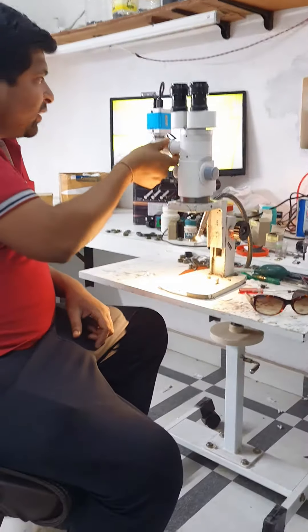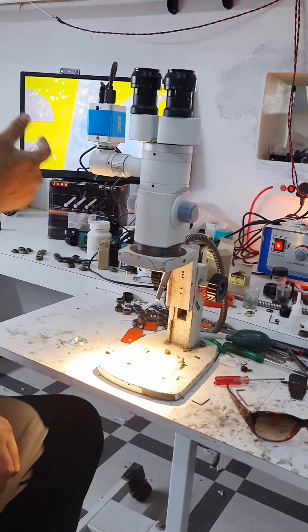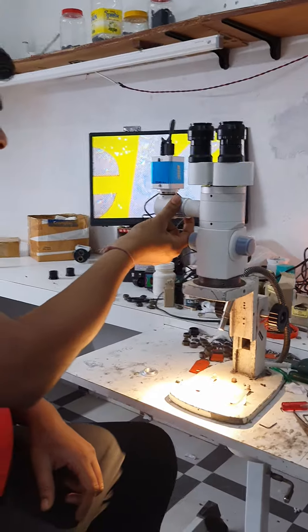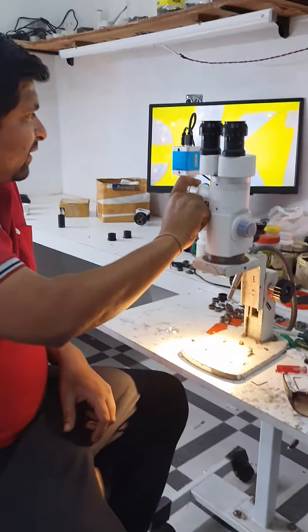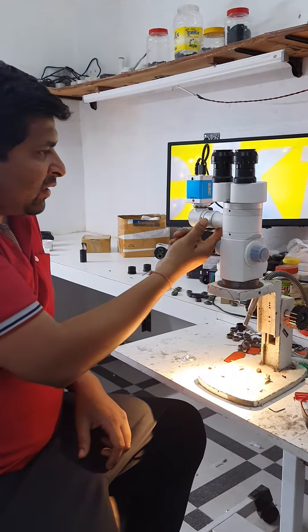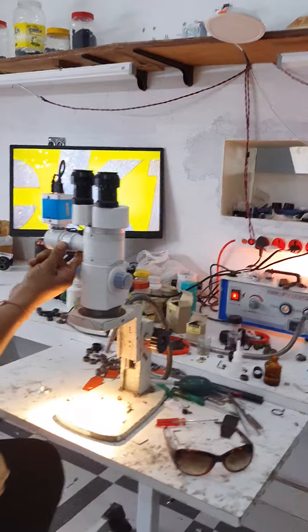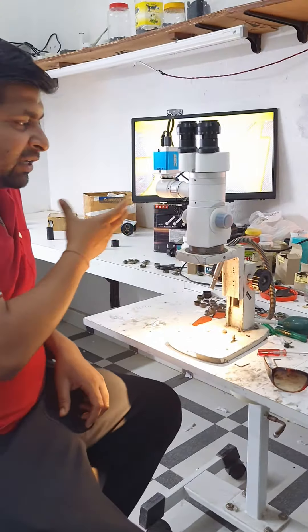It's a C-mount. You can focus the camera with the help of this. Like this — the image is blurred. When we rotate it, the image gets focused and it becomes clear. Like that, it was blurred. Now it is clear. So it's a C-mount for the camera attachment.